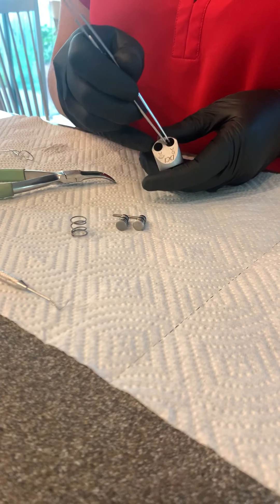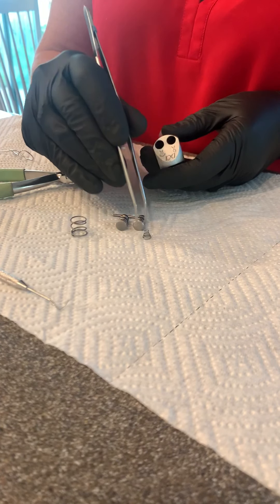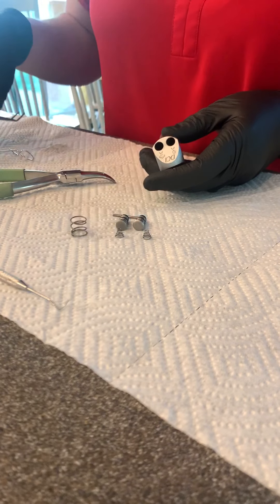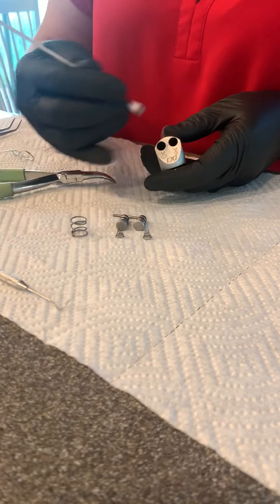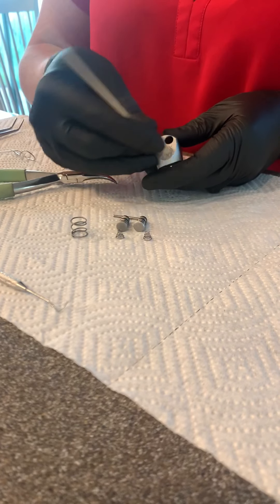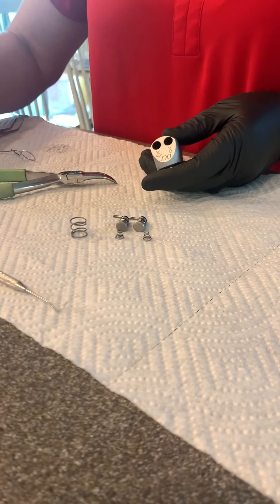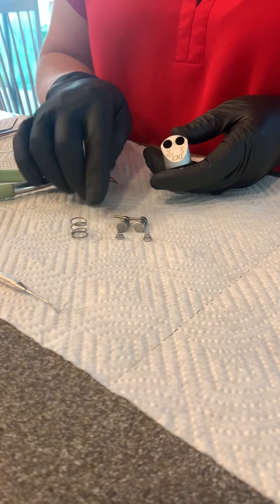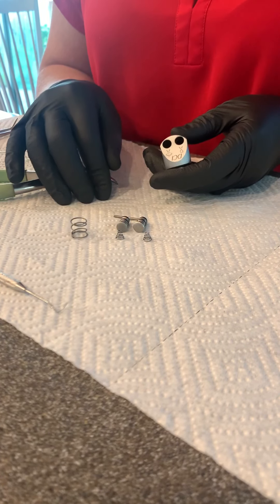Inside here are two springs, one on each side, shaped like Christmas trees. At this point I usually will take a cotton tip applicator and clean out. Don't be surprised if the buttons you removed and the springs that you remove are black or mossy — it's pretty common.